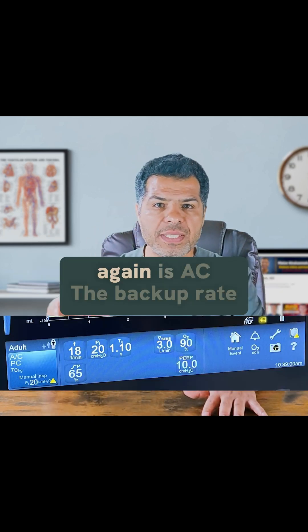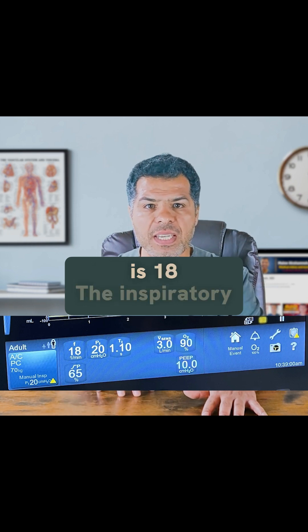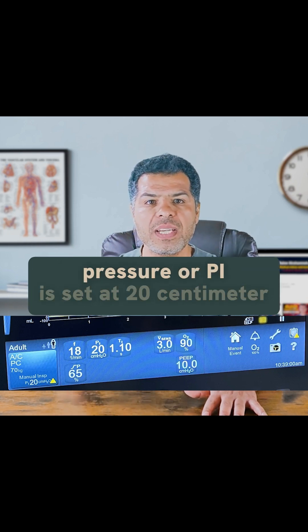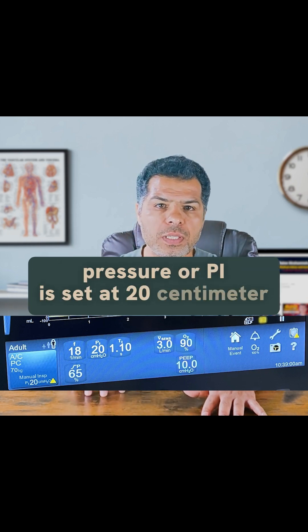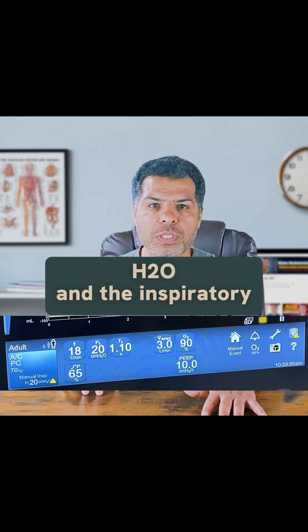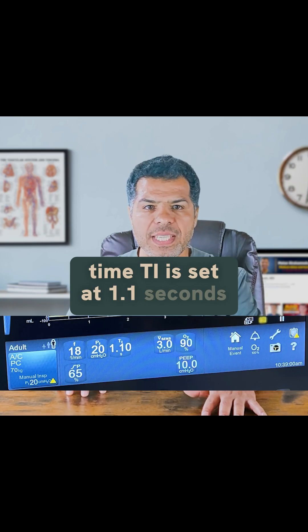Looking at this PC mode screenshot: the trigger is AC, the backup rate is 18, the inspiratory pressure PI is set at 20 cmH2O, and the inspiratory time TI is set at 1.1 seconds.